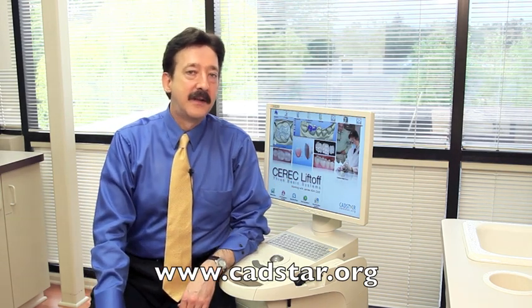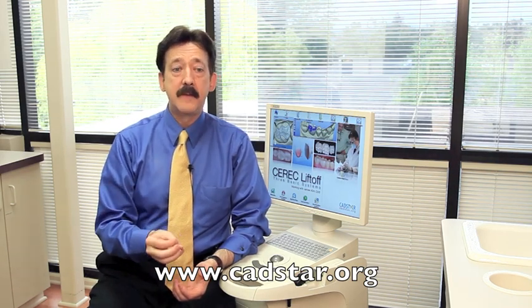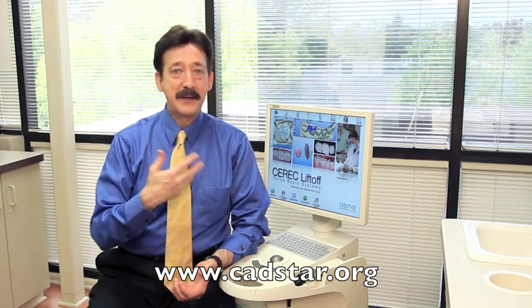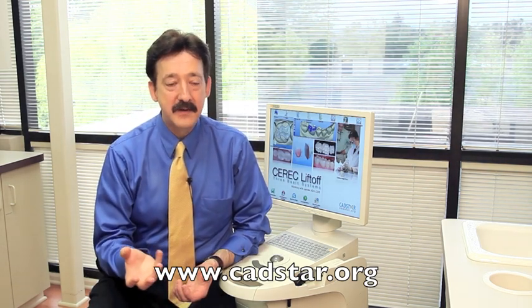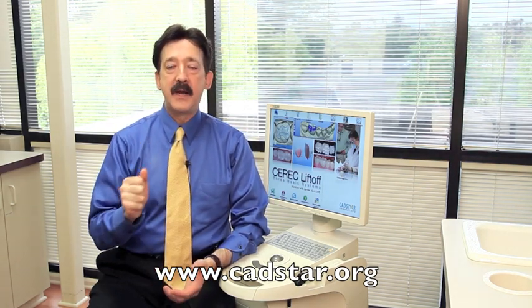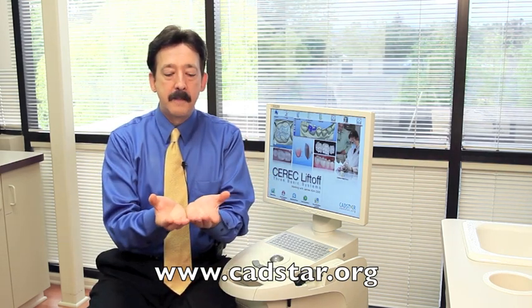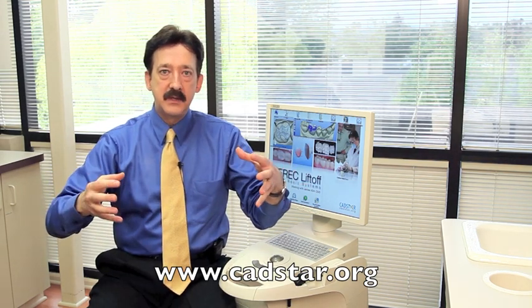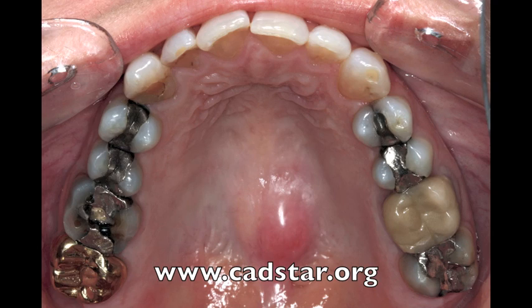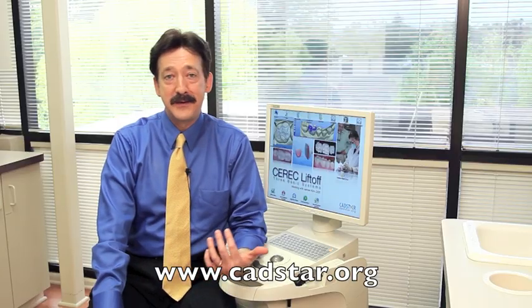This is a great system — the CEREC system is the most complete restorative system in the world right now. In our practices, I'm very honored and privileged to have this, and I'm glad it came about in my career. On the other hand, I also want to optimize it and abide by good restorative principles. So I look at the academic literature for all of ceramic dentistry — not always CEREC-specific literature — and I apply that to my CEREC work.